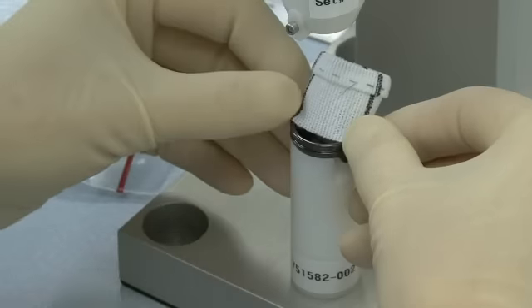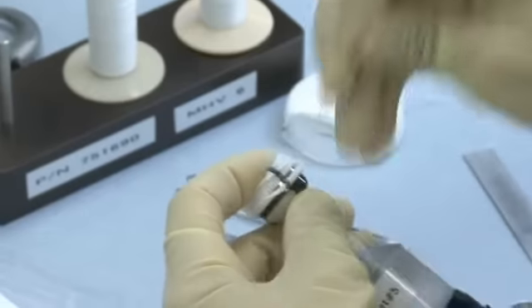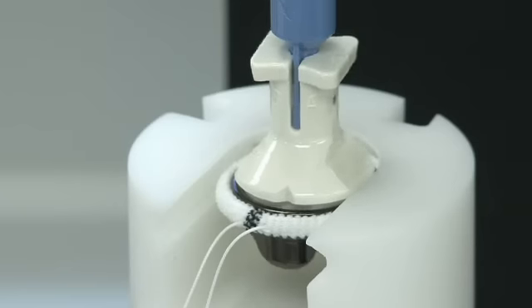Then, the orifice cuff is prepared and attached to the carbon ring assembly. This process has numerous steps which include cuff preparation, machine stitching, valve to cuff assembly, hand sewing the cuff and flange, and torque testing.